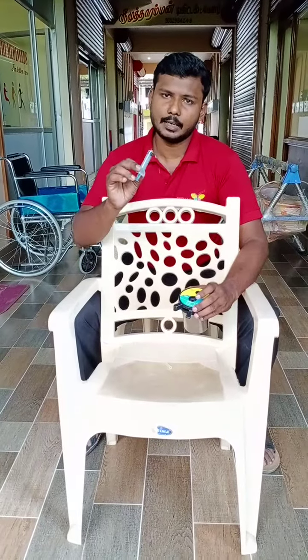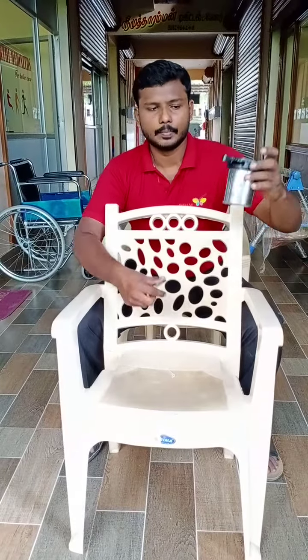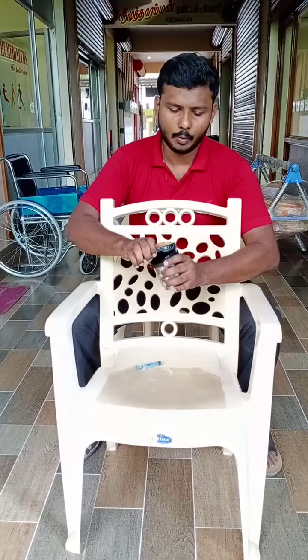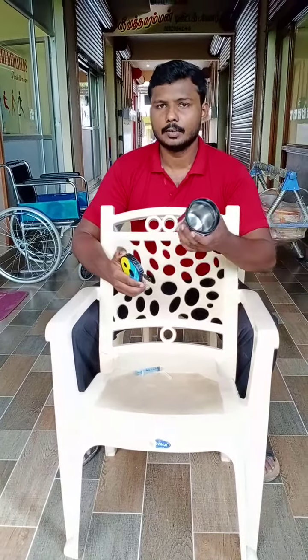You can dispose the barrel as plastic waste. The remaining parts will be inside this container. When the container fills up, you can open it easily and dispose of it through the biomedical waste management system.